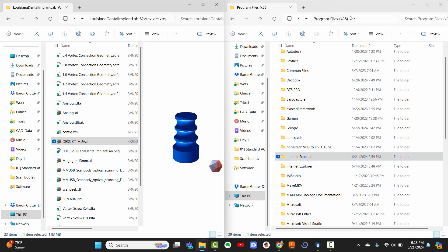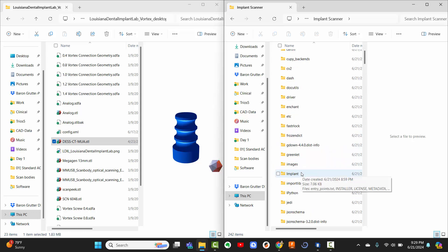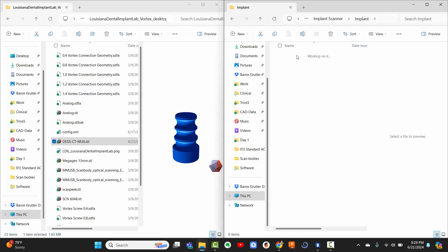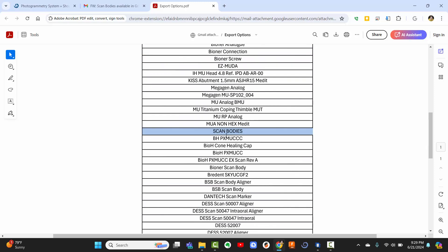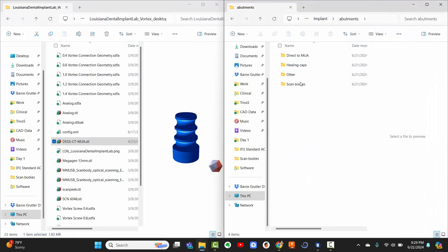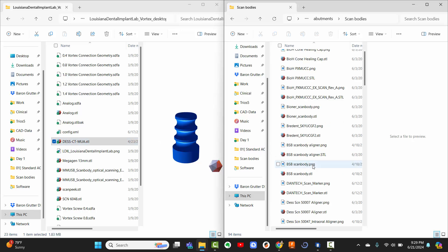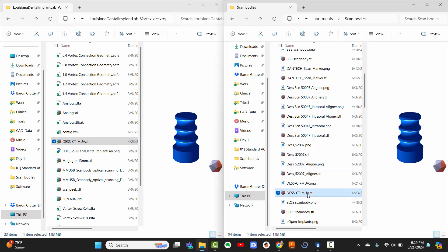So here it is, here is the file, I come in, now I've got to find where to put it. It should install under program files in the x86 folder, program files x86, under Implant scanner, we're going to come down to Implant, and now we're looking for Abutments. And now here are the different four folders, just like we saw a moment ago. There's these four different categories, scan bodies being the one that I am looking for. And all I have to do is drag and drop this into this folder. I've already done it, I meant to delete it before recording this video so I could show you, but as you can see, the same file name, same file, both.